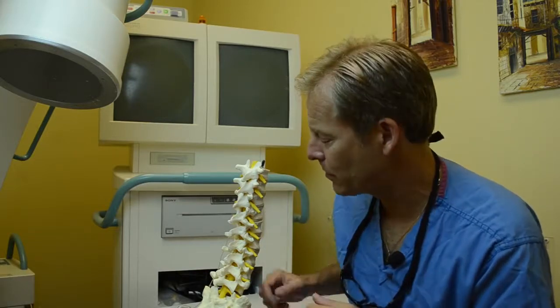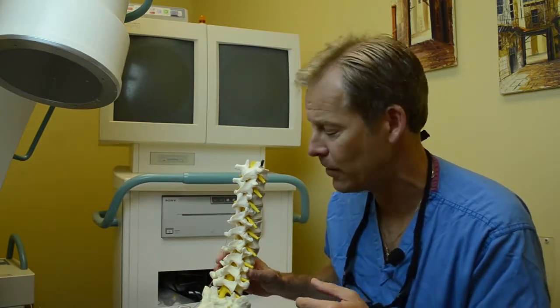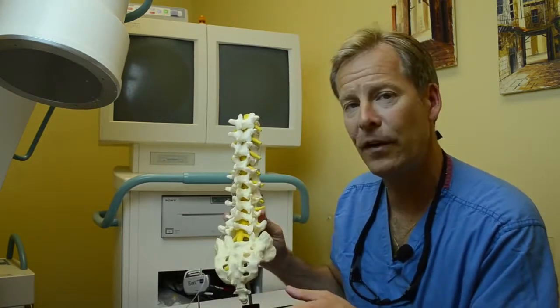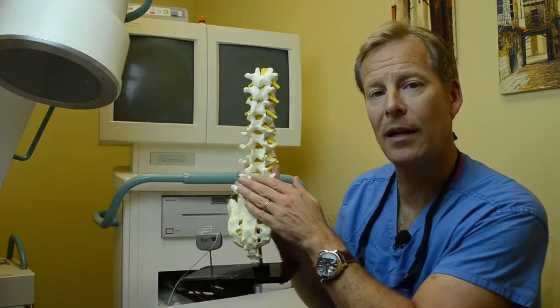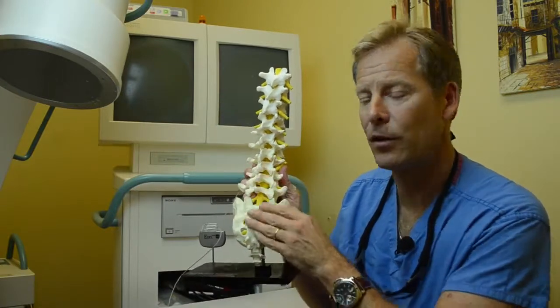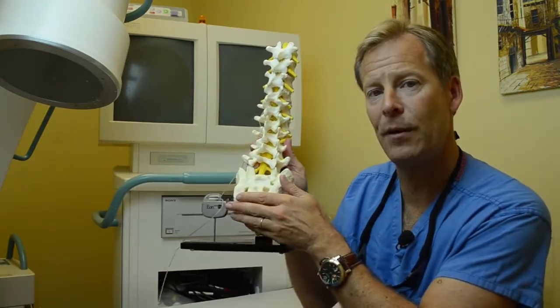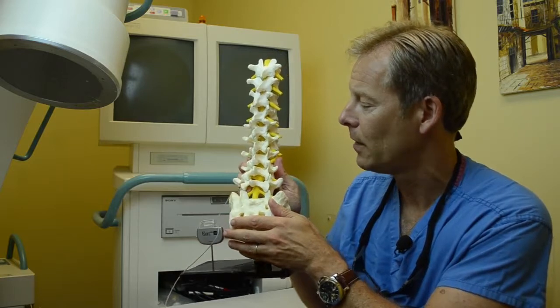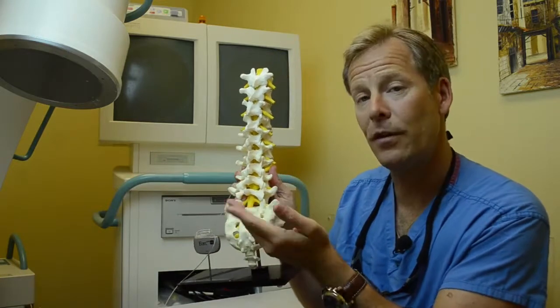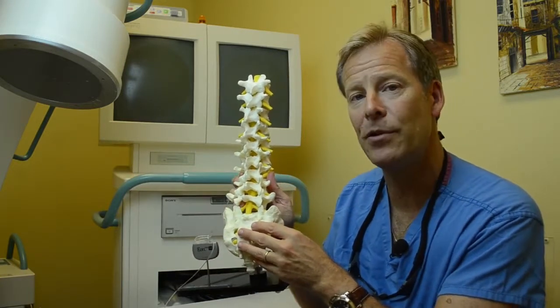Once you've been selected as the right particular type of patient, it's fairly straightforward. Here's a model of your low back, or your lumbar spine. This is your tailbone that you sit on — the sacrum. First off, the way it starts is by placing an epidural.